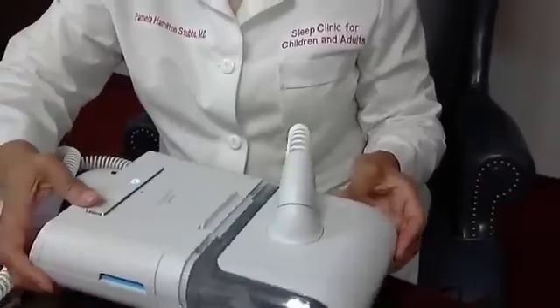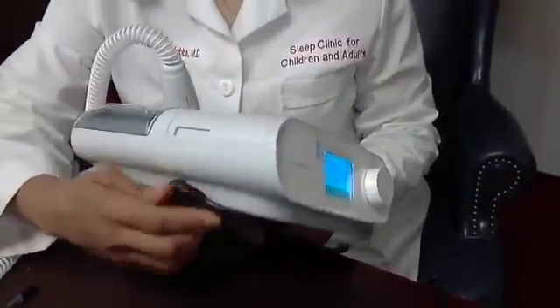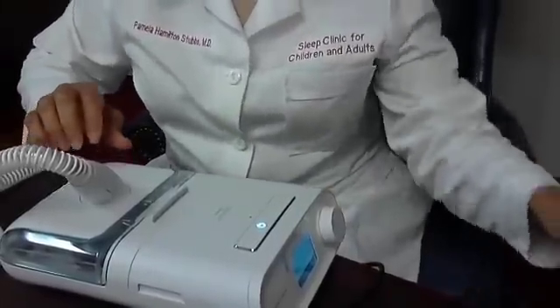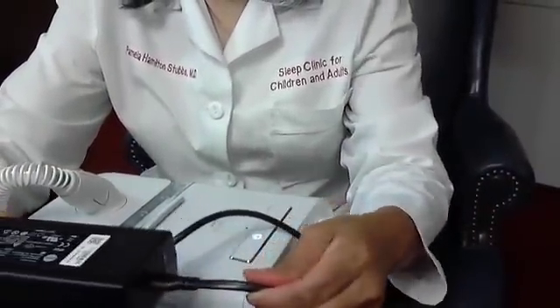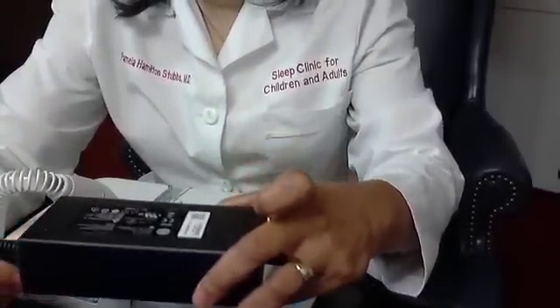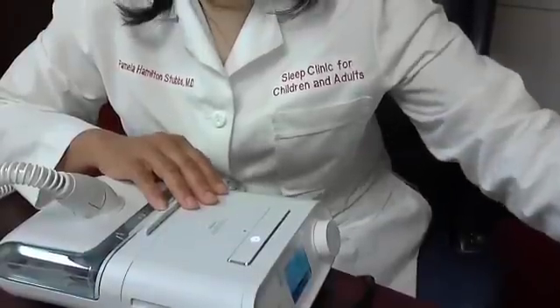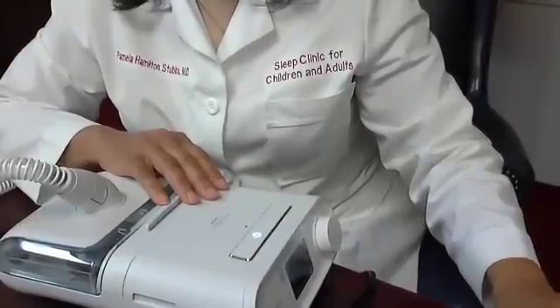One other thing — the power cord. This is the power cord and it attaches to another part of the cord, where this section comes loose and the other part goes into the wall. Sometimes when traveling, people forget to take the power cord with them — they disconnect the machine and leave the cord in the wall. Don't forget to take your power cord with you and put it in your travel bag.